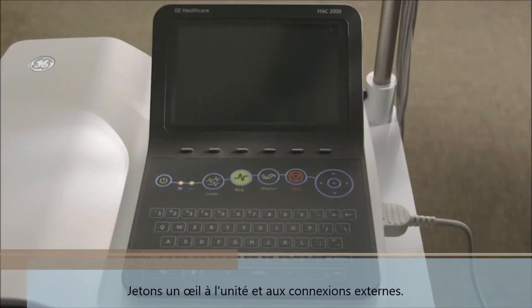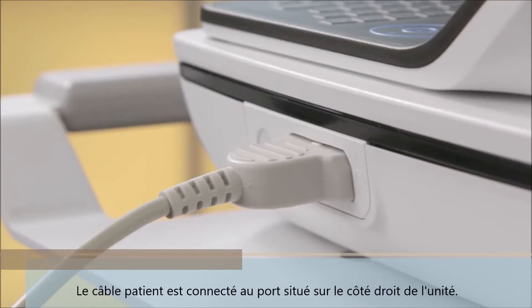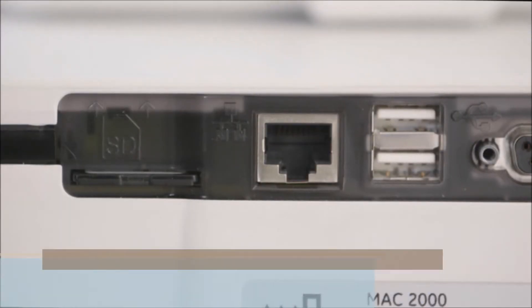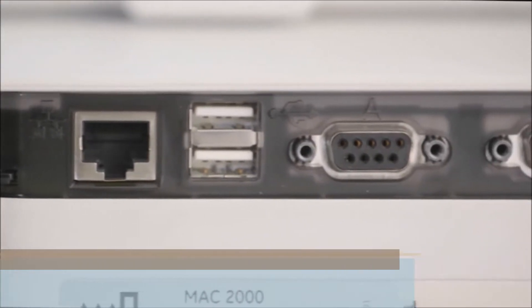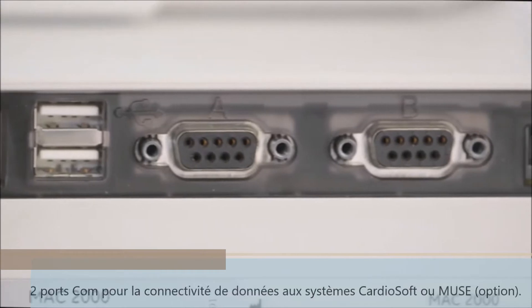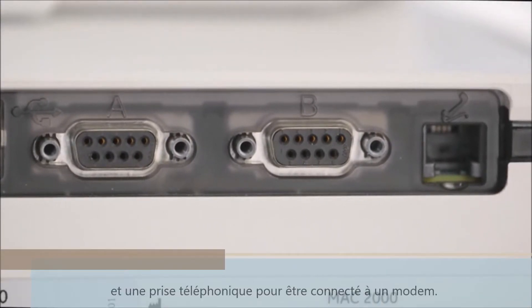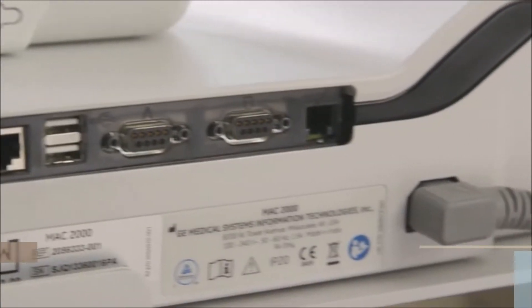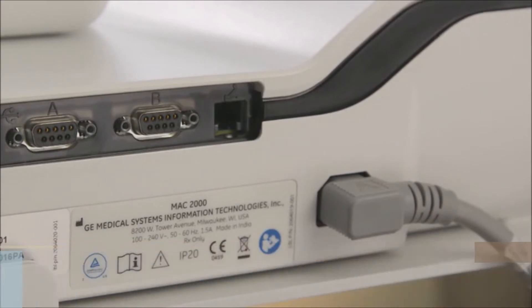Let's take a quick look at the unit and the external connections. The patient cable is connected to the port on the right side of the unit. At the back of the unit you will find an SD card slot, an Ethernet LAN connection, two USB ports that can be used for an optional barcode reader and Wi-Fi, two COM ports for data connectivity to CS or Muse systems, and a phone jack for an analog phone line that connects to the internal modem. The power connection at the back of the unit should be plugged in whenever possible to keep the unit's battery fully charged.